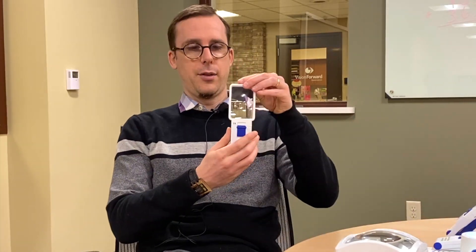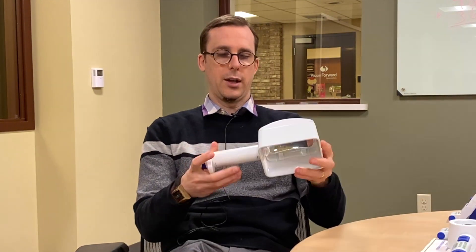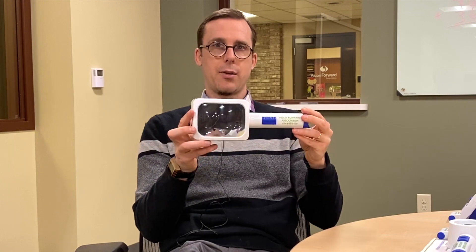On the table here I have a number of different magnifiers, all different shapes and sizes. We have a 3x rectangular magnifier, a 4x circular magnifier with a little stand it can go in, and a circular 7x magnifier. Then we have a couple of stand magnifiers — ones that rest on a surface instead of being held in the hand: a 7x stand magnifier and a 3x stand magnifier.